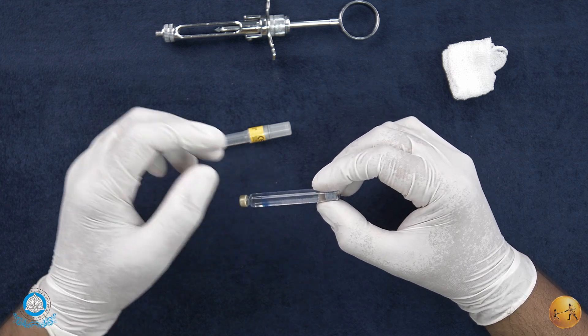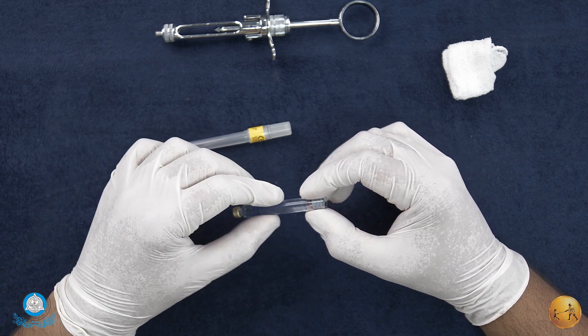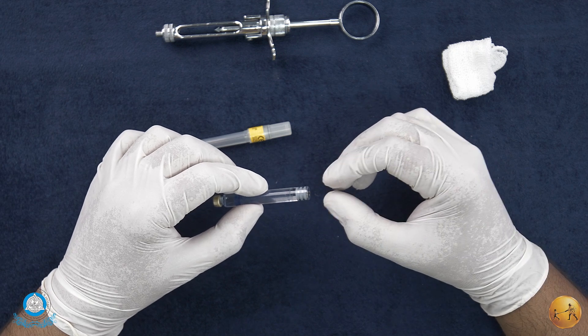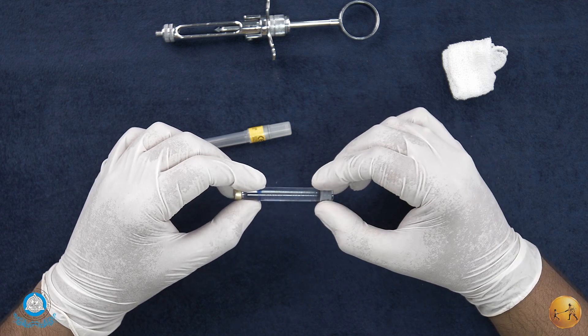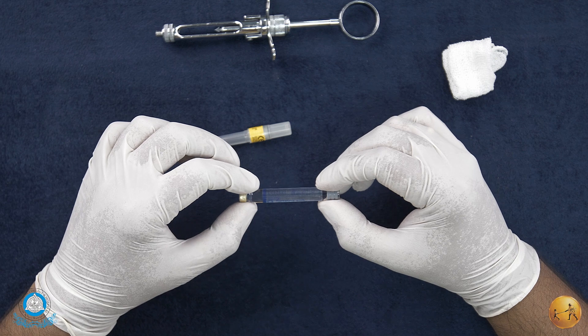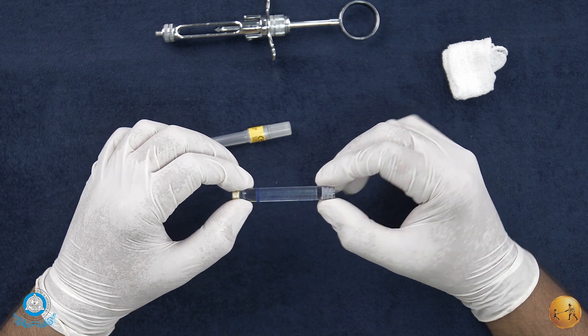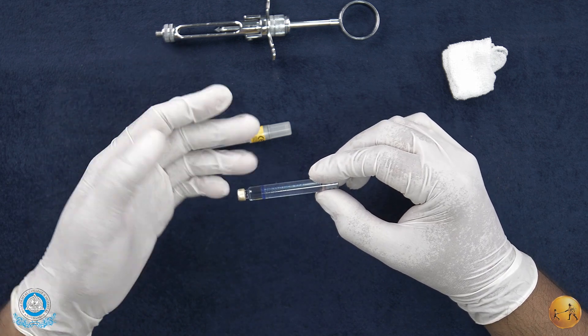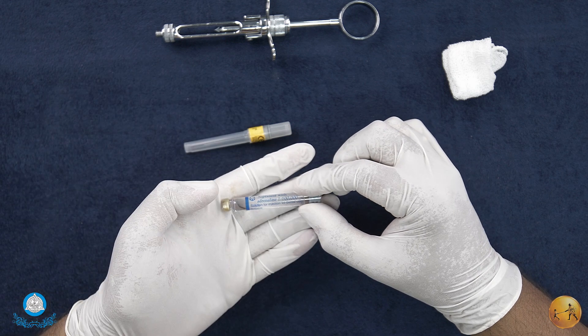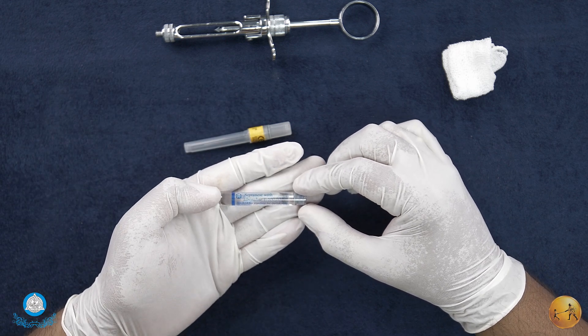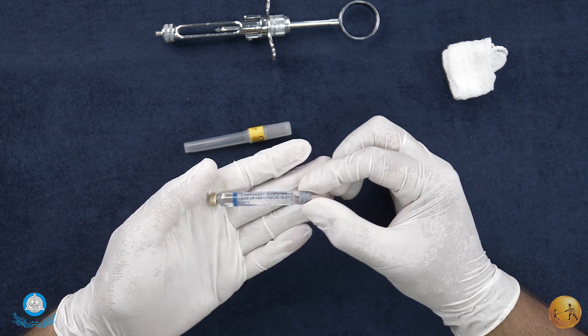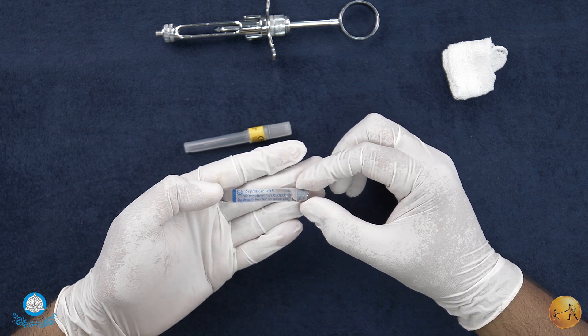That happens because of freezing where the water expands and pushes the stopper outwards. Another indication could be an air bubble that may form. Generally certain cartridges do have about a nitrogen air bubble which is about one to two millimeters in diameter.